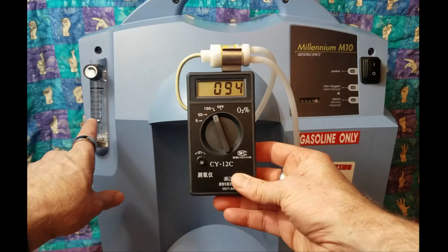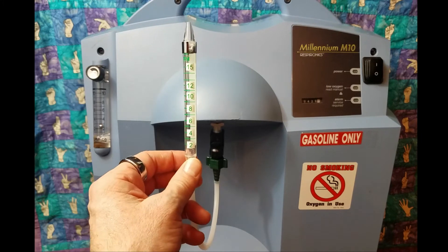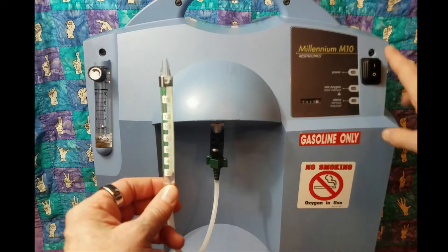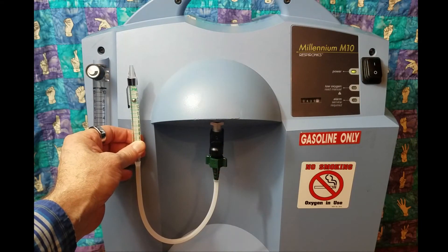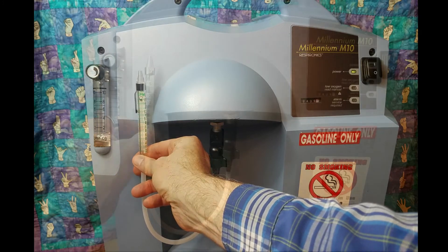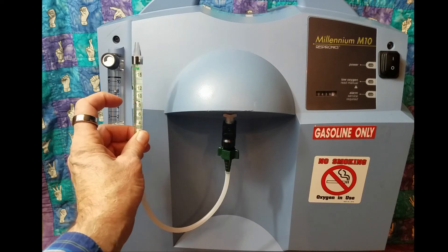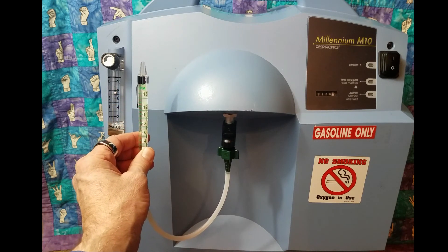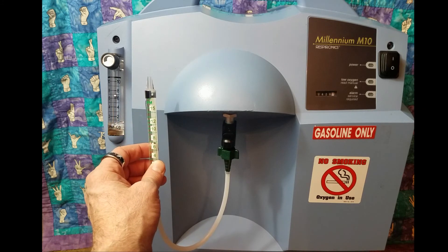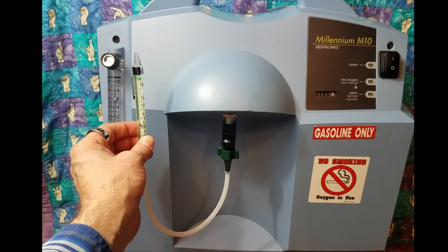I'm able to sustain four liters at 94%. This part I'm making up as I go along — I just ordered this off Amazon, maybe 80 dollars. When the flow meter on the concentrator showed 10, this external meter showed around 12. I'm less concerned about the exact flow, only that I get full flow of 10 — and by either gauge I'm getting that. I'm more concerned about the actual oxygen concentration. By either measure, I'm getting 10 liters per minute and above.